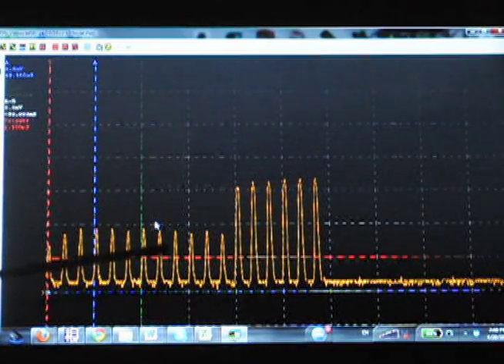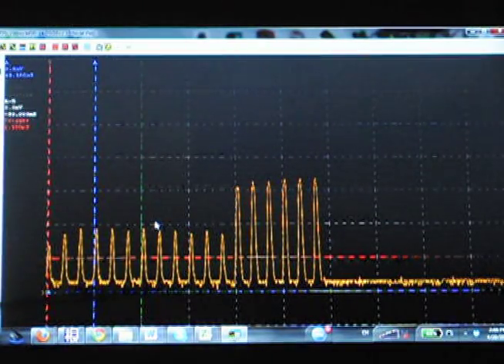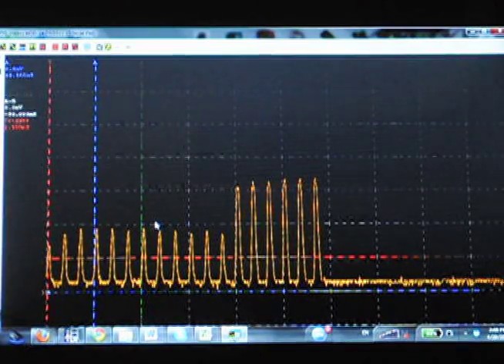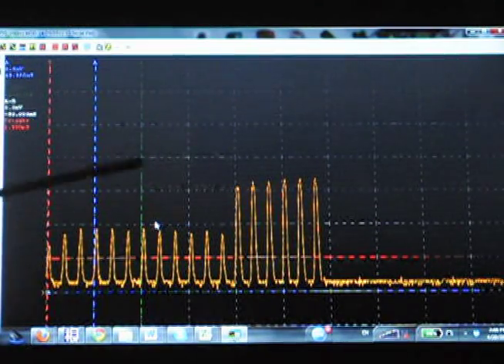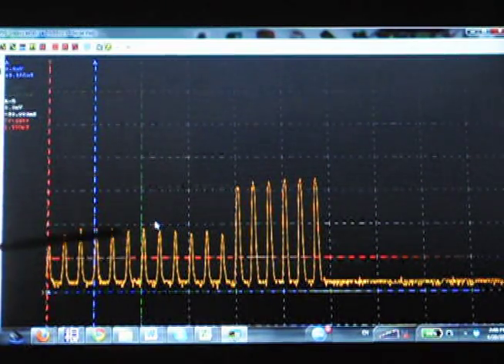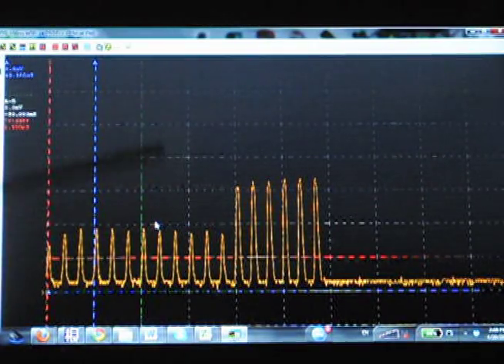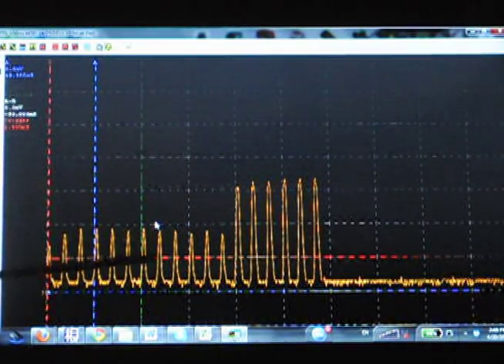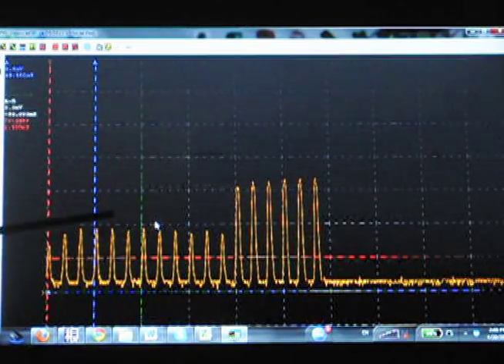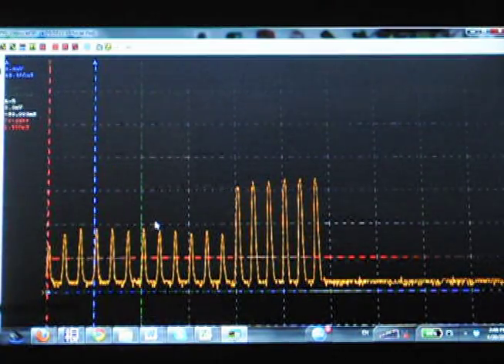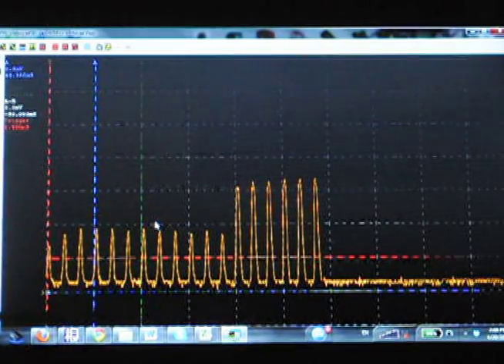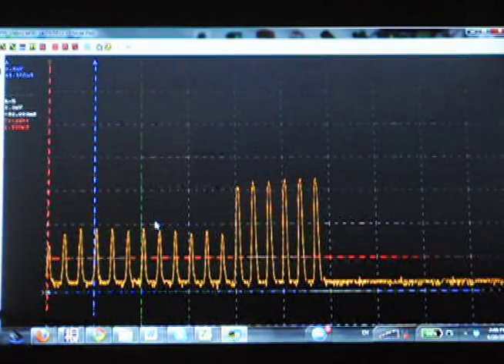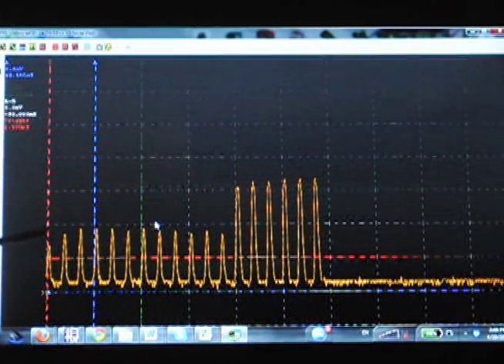I prefer the PC-based oscilloscope using it with the XD88, the x-ray detector, because you can actually file and save your waveforms and documentation. So you can see how much an x-ray changes over time, and you could actually show it to somebody else if you wanted to talk about different x-ray issues.